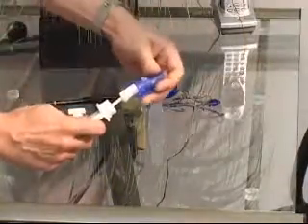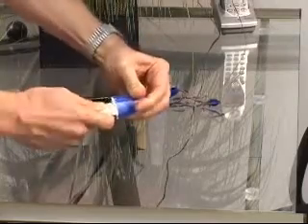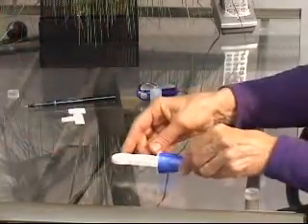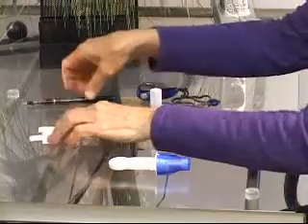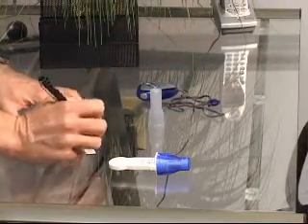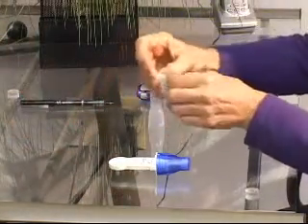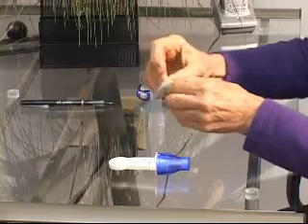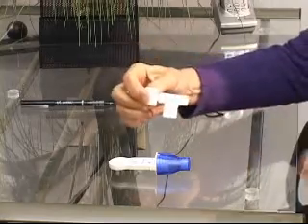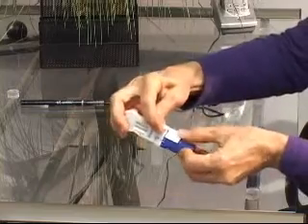Once the collection is complete, the donor should be instructed to close and secure the device by placing the blue cap down over the swab and turning the cap clockwise. This process will cause the test to begin to run. Instruct the donor to initial or sign and date the security seal provided in the box with the OFDs. Then place the seal over the test device, being careful to cover the laboratory sample port.